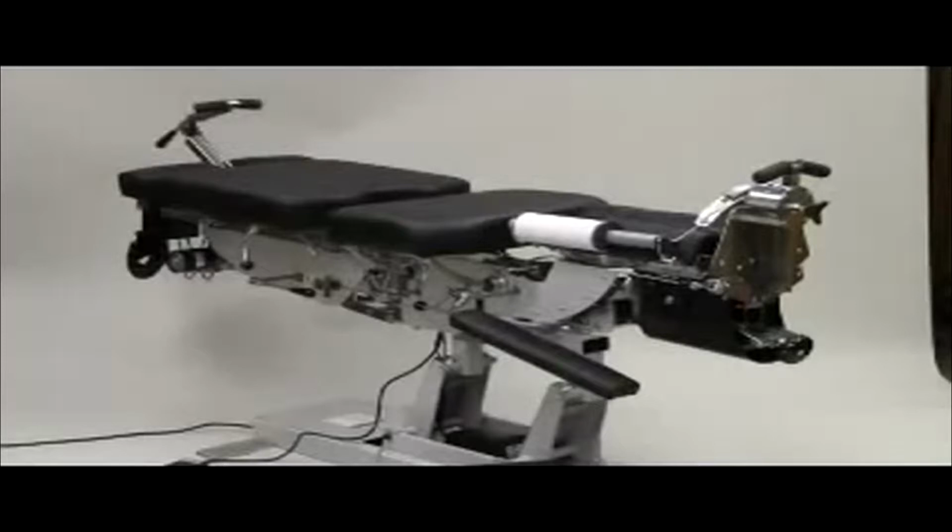A new and important option is the abdominal swing away, which drops down for patient comfort, and another option is a raised pelvic, which upgrades the table for most any technique. Another new option is the touch buttons, the operative switches for elevating and lowering the table for the doctor's best comfort. And that concludes the operative options for this table.